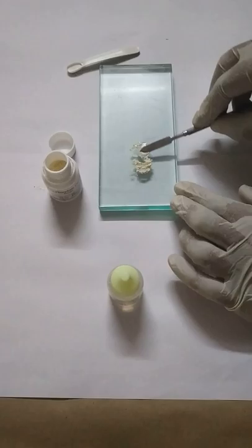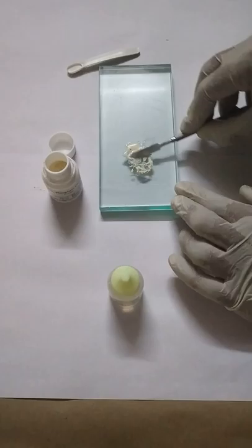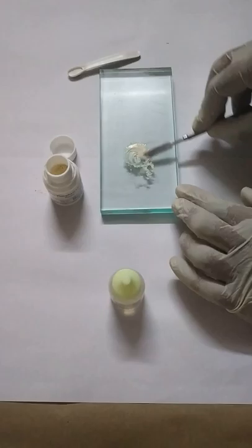First mix it over the liquid for 10 to 15 seconds like this in a circular manner. Each increment is taken and you mix it, and then over a larger surface area.